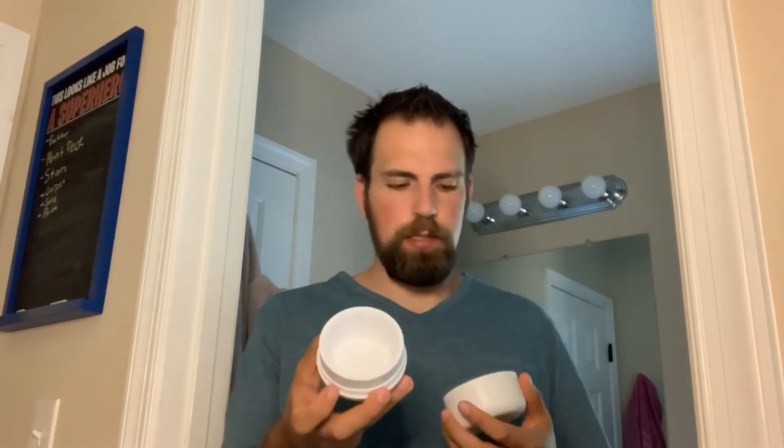It's been about 20 minutes almost on the dot. I've got the kit - we're going to unscrew it, collect in here, and then press this button at the end. This is the part I will not be filming, so I'll get you guys on the other side.